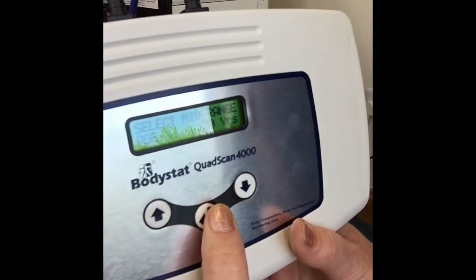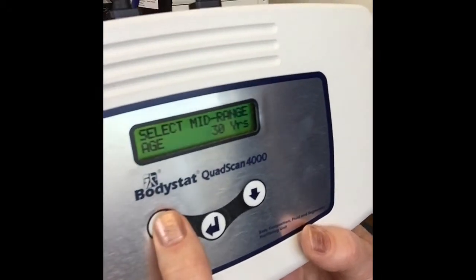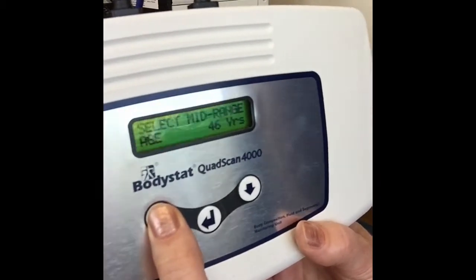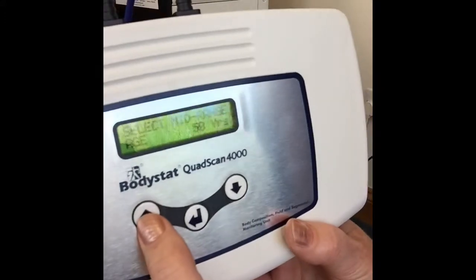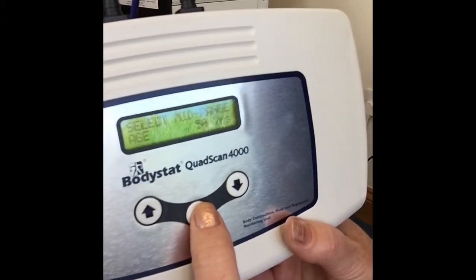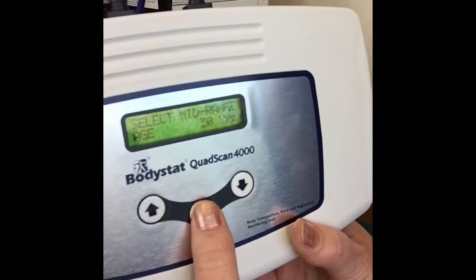Then you have the option of changing the age — the first age that comes up. For example, if your population group is a little bit older, we can increase that default age to about 50. Incidentally, the longer you hold the up or down arrow key, the faster the change will be. So by selecting 50, that age will come up during the measurement as your default age.